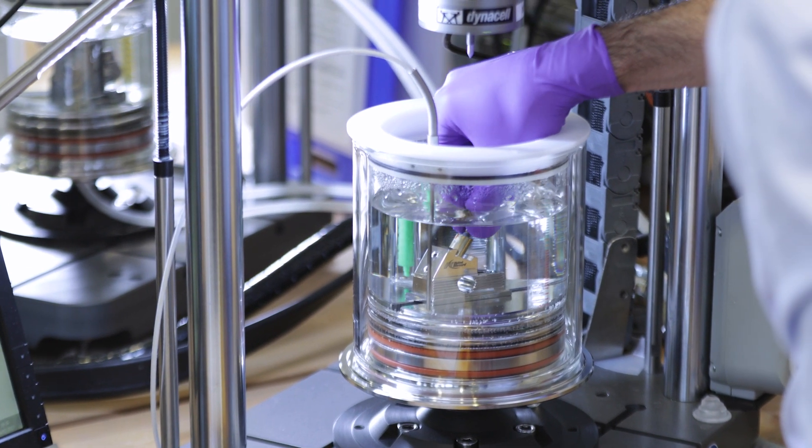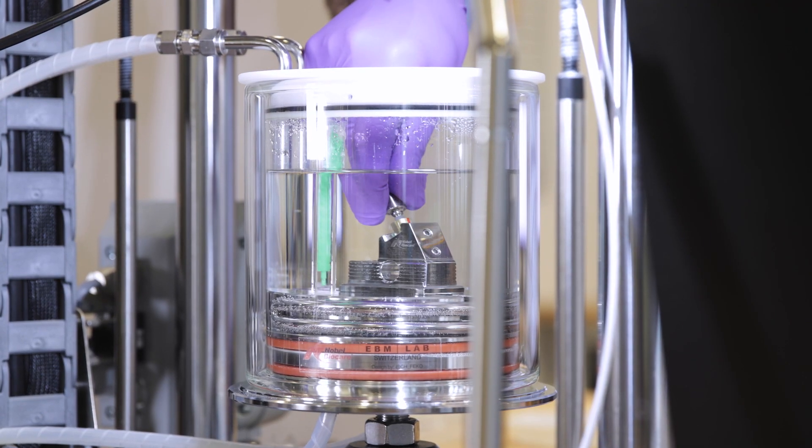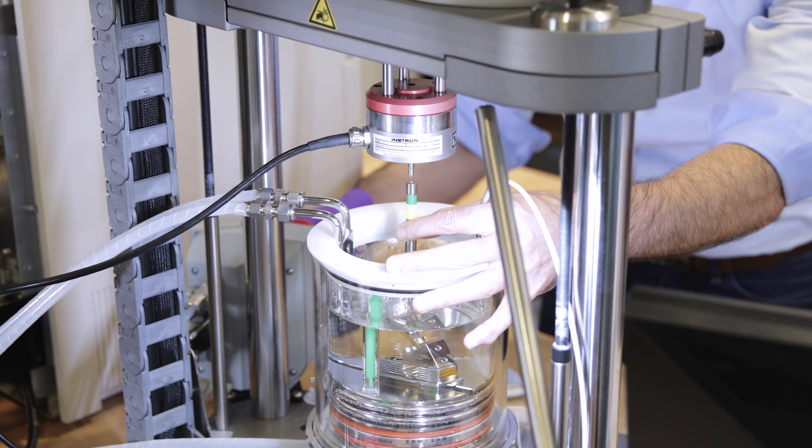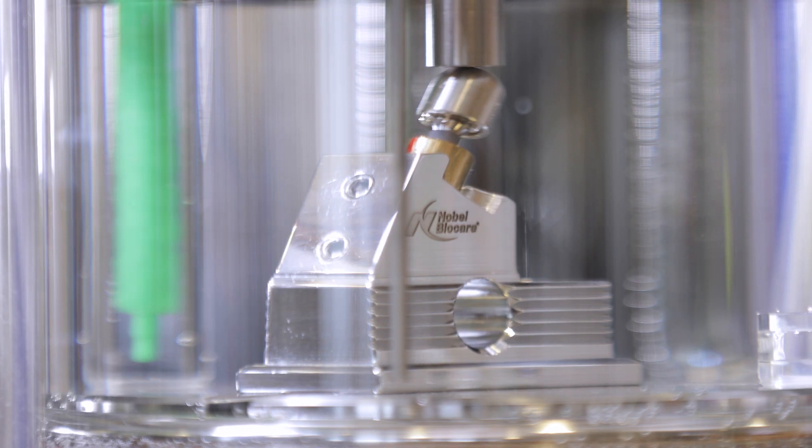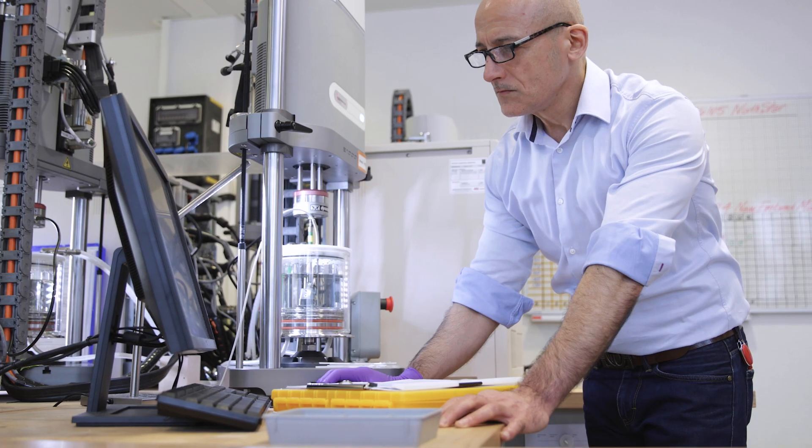The specimens are tested under worst case conditions in a water bath with circulating saline solution at 37 degrees Celsius. The test progress is continuously monitored.